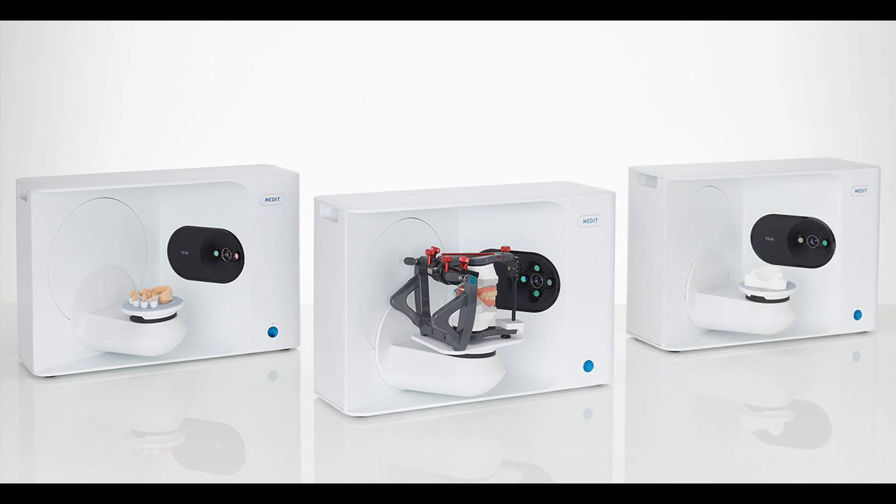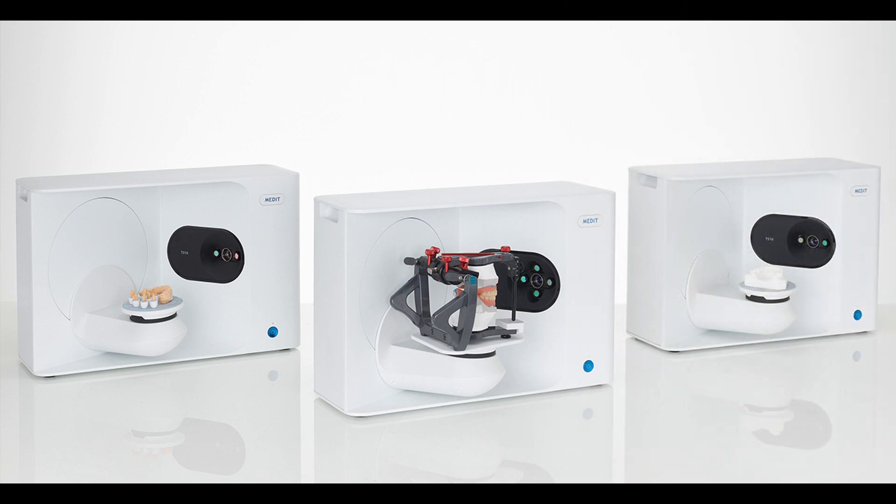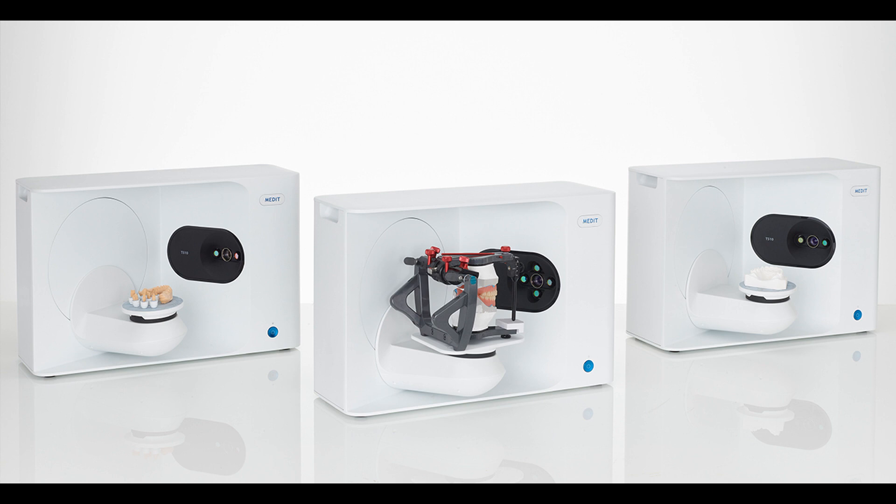Hello, this is a training video for Medit's new T-Series desktop scanner, especially for orthodontics.